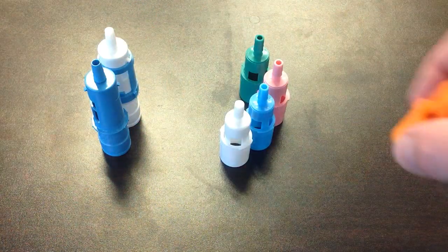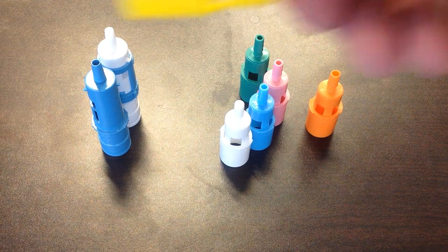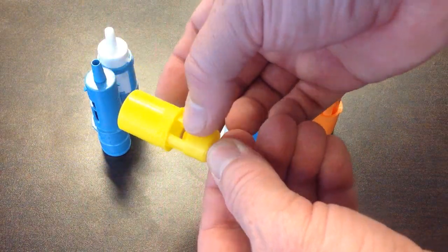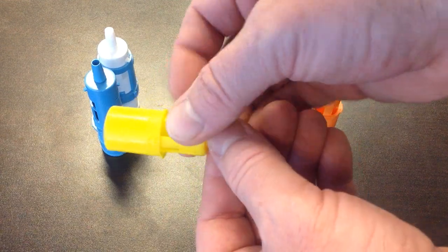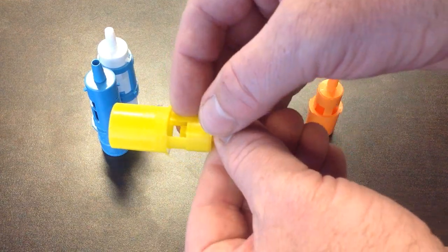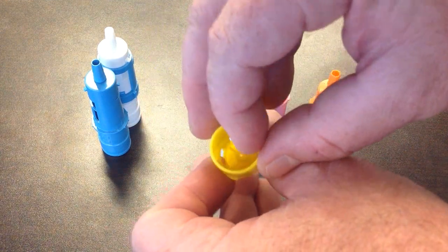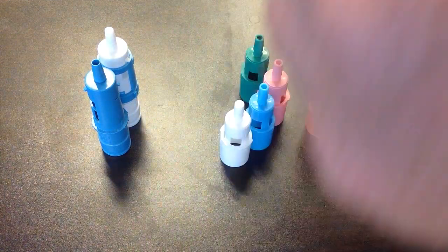What do you need to know about this? How to use it? Just to give you some historical background, the jet goes through causes negative pressure in here which then sucks room air into these holes, into these ports, which will then dilute the hundred percent oxygen that's coming from the wall down to the exact FiO2.